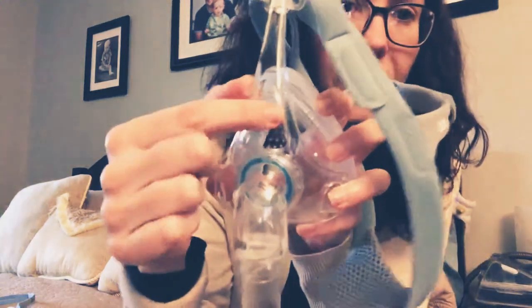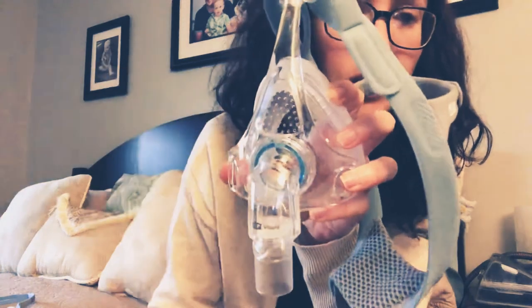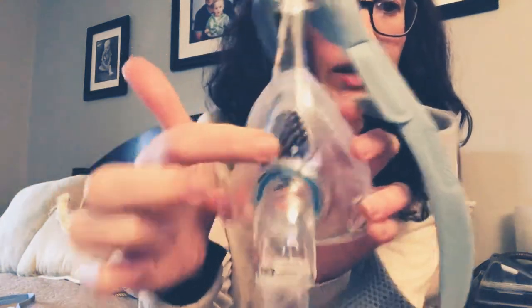So that's one style of full face mask. Another style — like the Fisher & Paykel — you can see the exhalation port right up front here. Don't ever do the things I've heard throughout the years: I've had people cover it with tape, I've had people shove cotton balls up there. There's a reason the manufacturers put that on the mask — it's safety. So please don't do that. The exhalation port is here on the full face mask and you can really see it and see that flap.